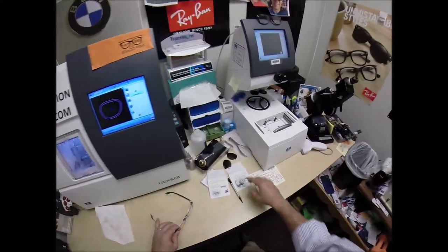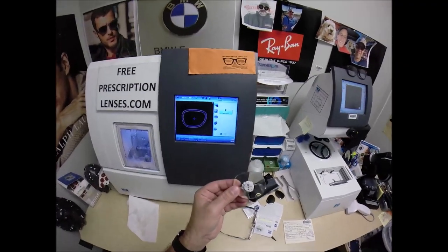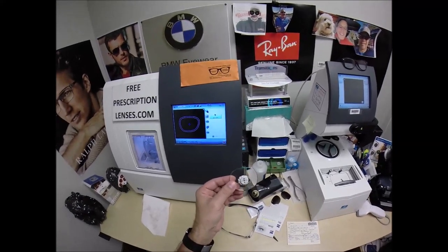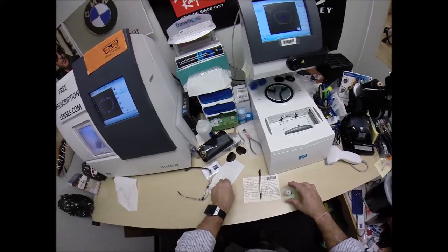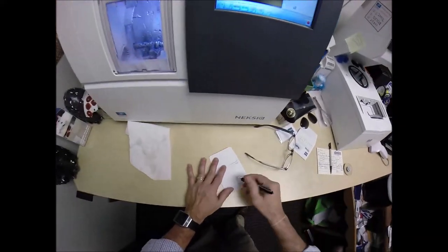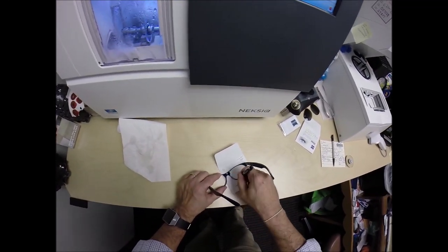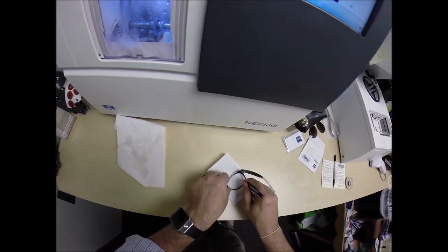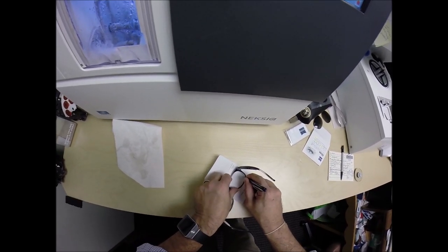I'm taking the lens size down even more — going half a millimeter. That seems like a lot, but I just know this frame. I've been wearing it myself for seven years. The 52 eye size cuts on perfectly, but hopefully the 55 needs just a little bit more taken off of it.